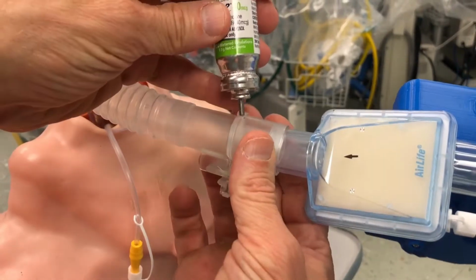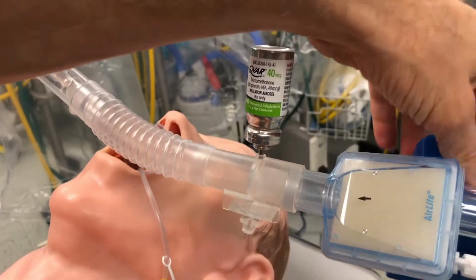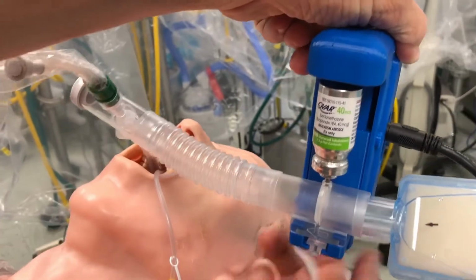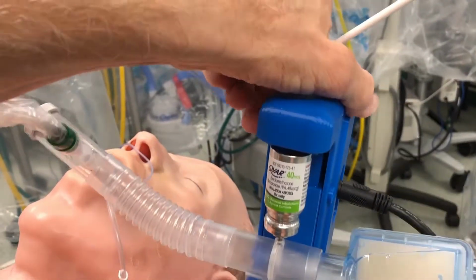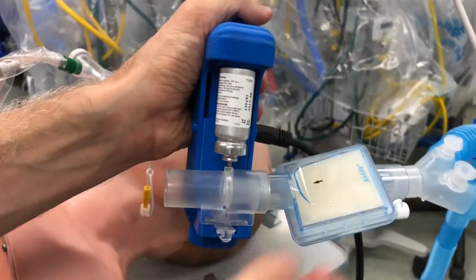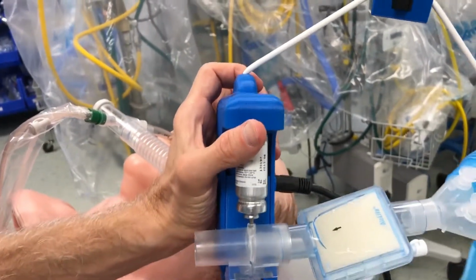Demonstration of an insertion of a MDI canister into the MDI adapter, followed by insertion of the actuator distal to the heat and moisture exchanger. The canister is tightened. The actuator is adjustable and readily accepts different sized MDI canisters. The knob adjusts the MDI canister like a gas cap that prevents over-tightening.